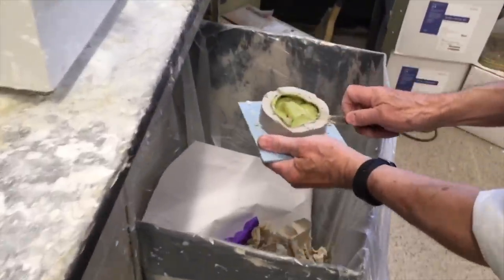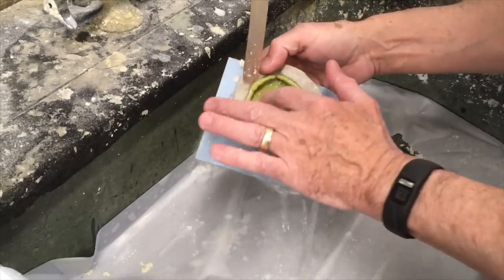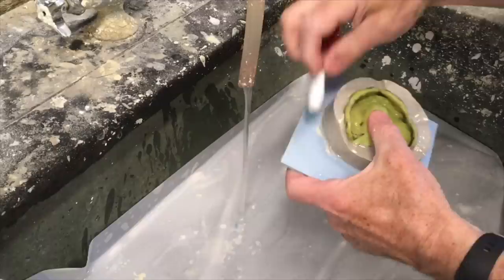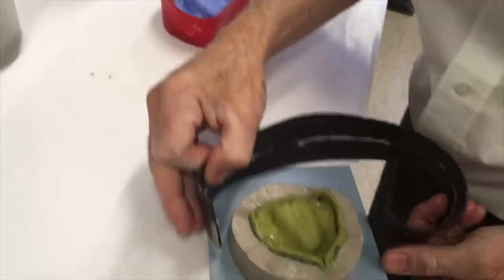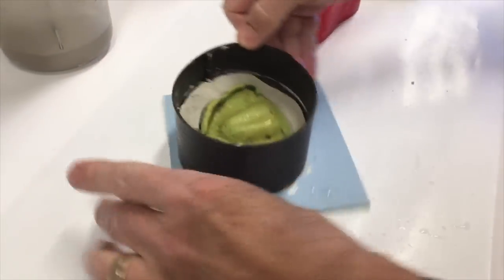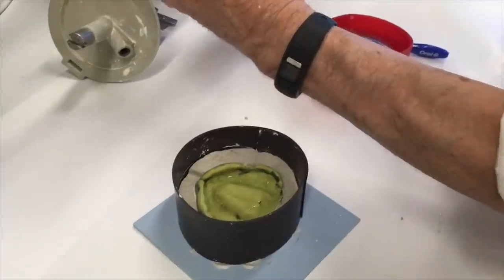Remove this extra rather than throw it in the sink. I'm going to rinse this — make sure I'm not leaving any pumice or plaster-pumice inside the impression. You can take a toothbrush and brush it lightly if needed. I'm going to leave this wet because I want it wet when I pour it anyway. Then I can come back and put the magnet back around, lining it up where the little index is so it fits tight so I don't have stone leaking. The impression is already wet and I've already got water measured out in the bowl — the water goes in first. I'm not going to measure out the powder because I know the consistency I want.